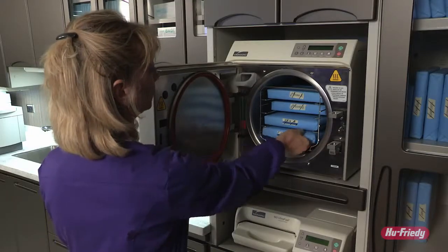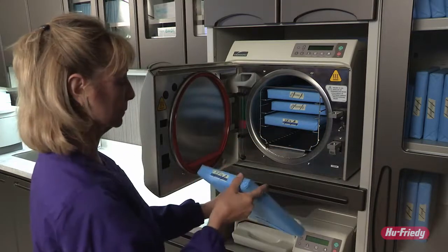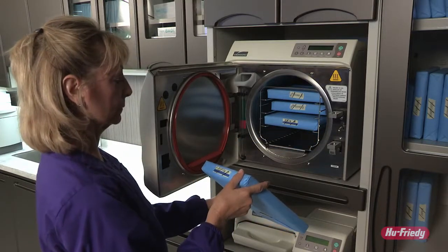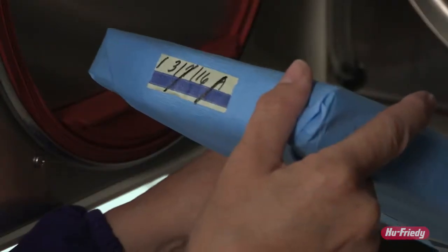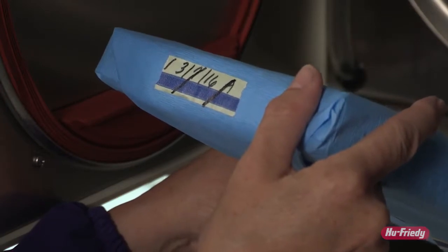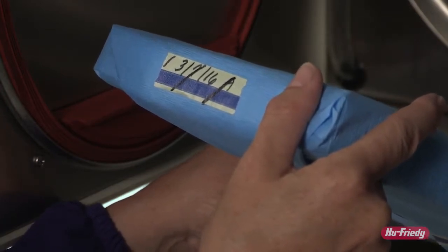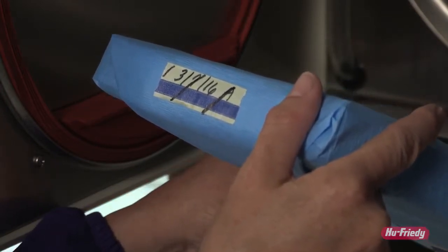PPE is not required when removing sterile packs from the sterilizer. Hands should be clean and dry. Check the monitor tape or the indicators on the pouches to confirm the sterilization process occurred.